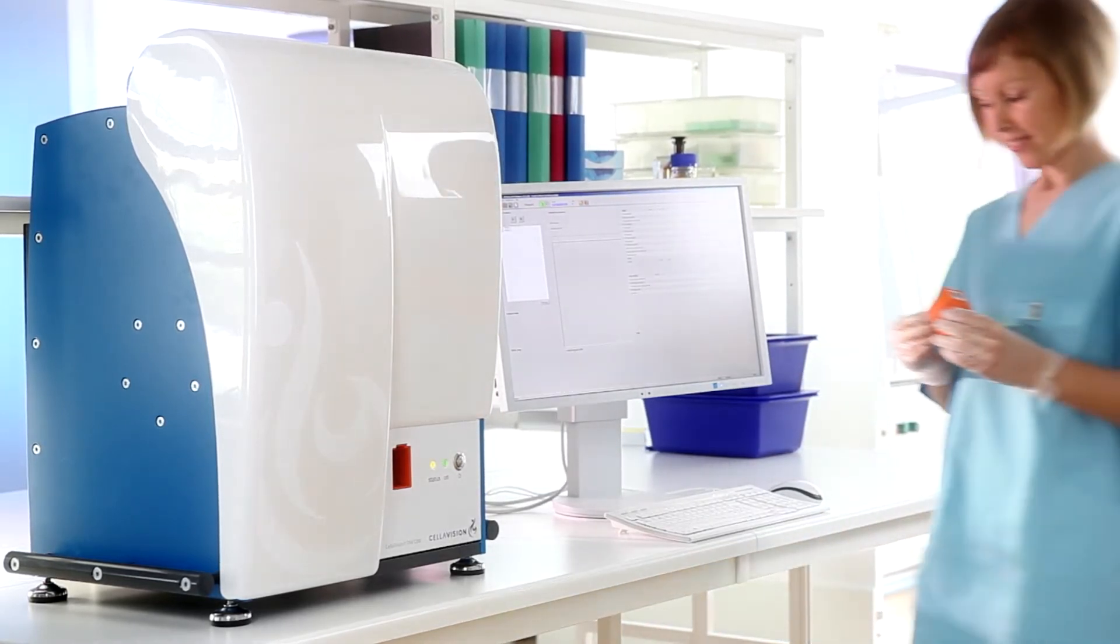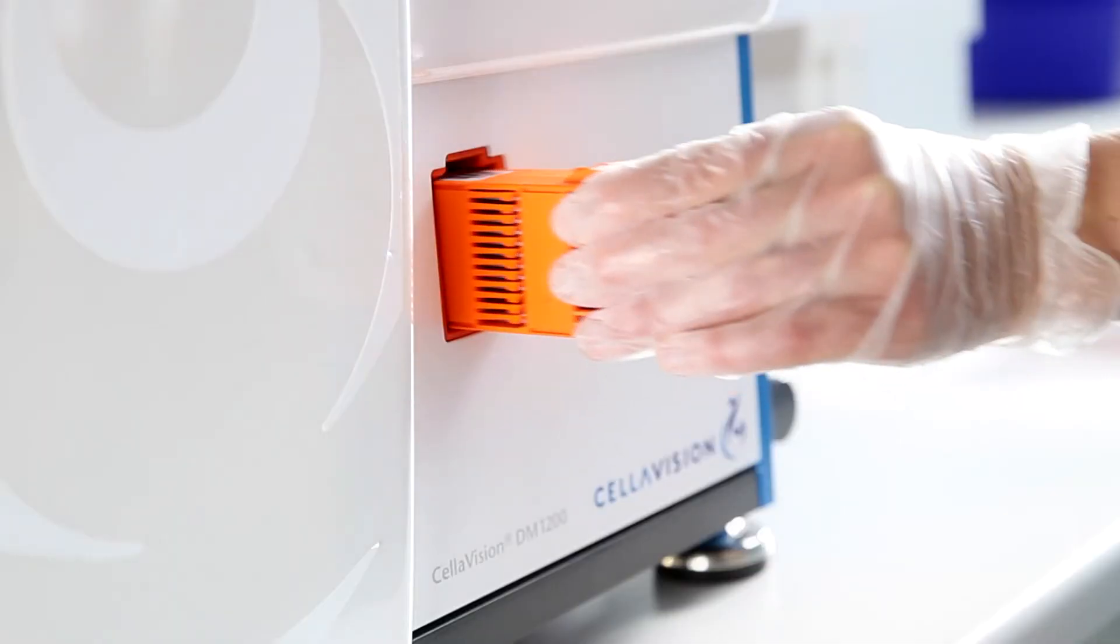With a loading capacity of 12 slides and a 20-slide-per-hour throughput, the DM1200 system is suitable for both large and medium-sized laboratories.